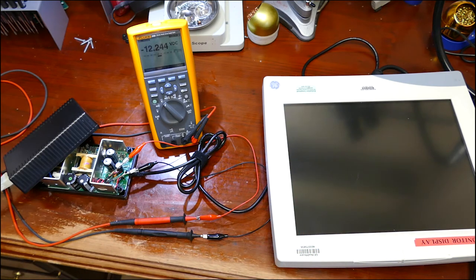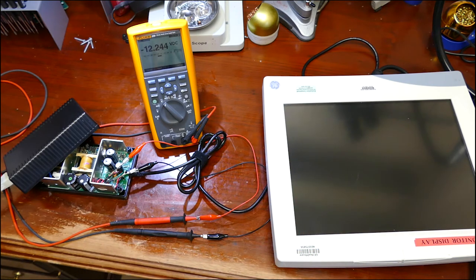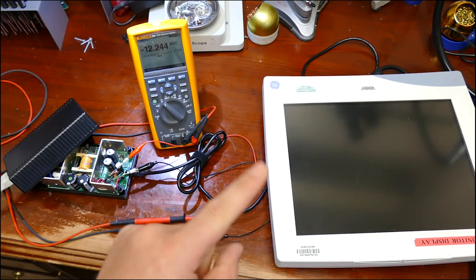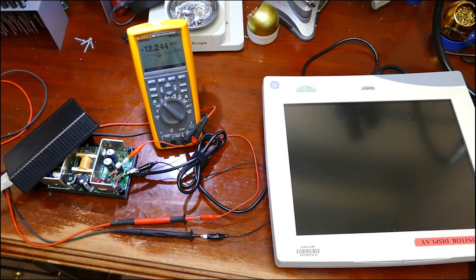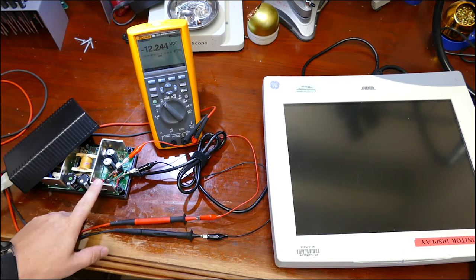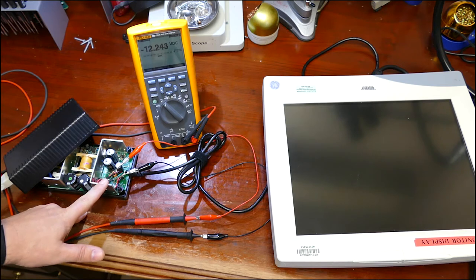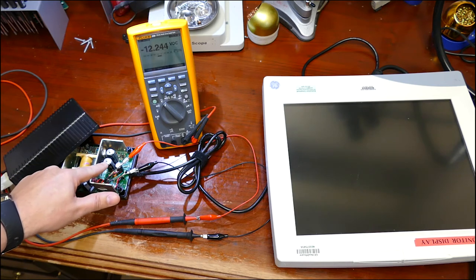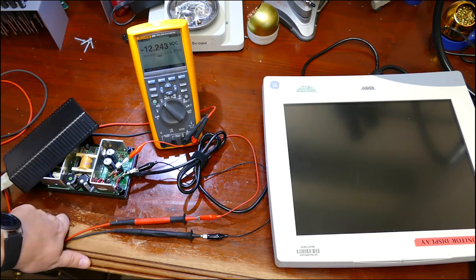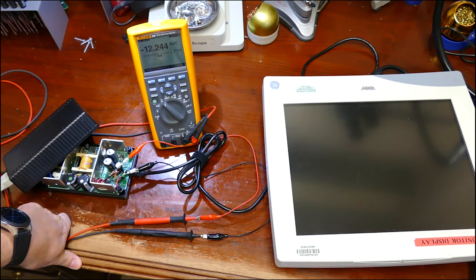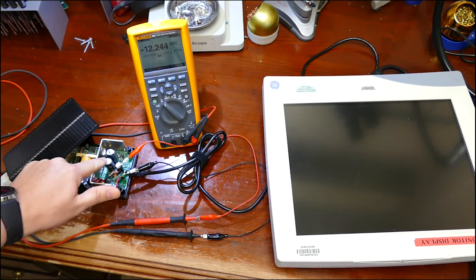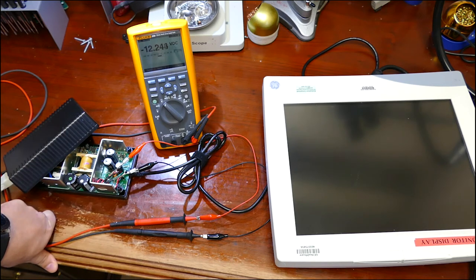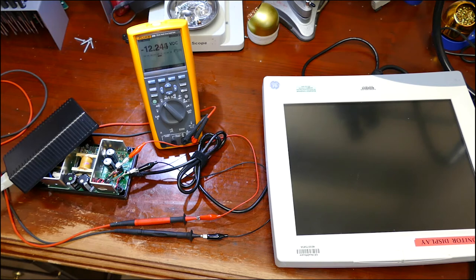And a lot of technicians will ship the display out to the manufacturer because they think that's the problem. Well, power supplies have a life expectancy. These electrolytic capacitors, they have a life expectancy. And you can see here that they're starting to bubble out and they're starting to leak, which means they are at the end of their life.